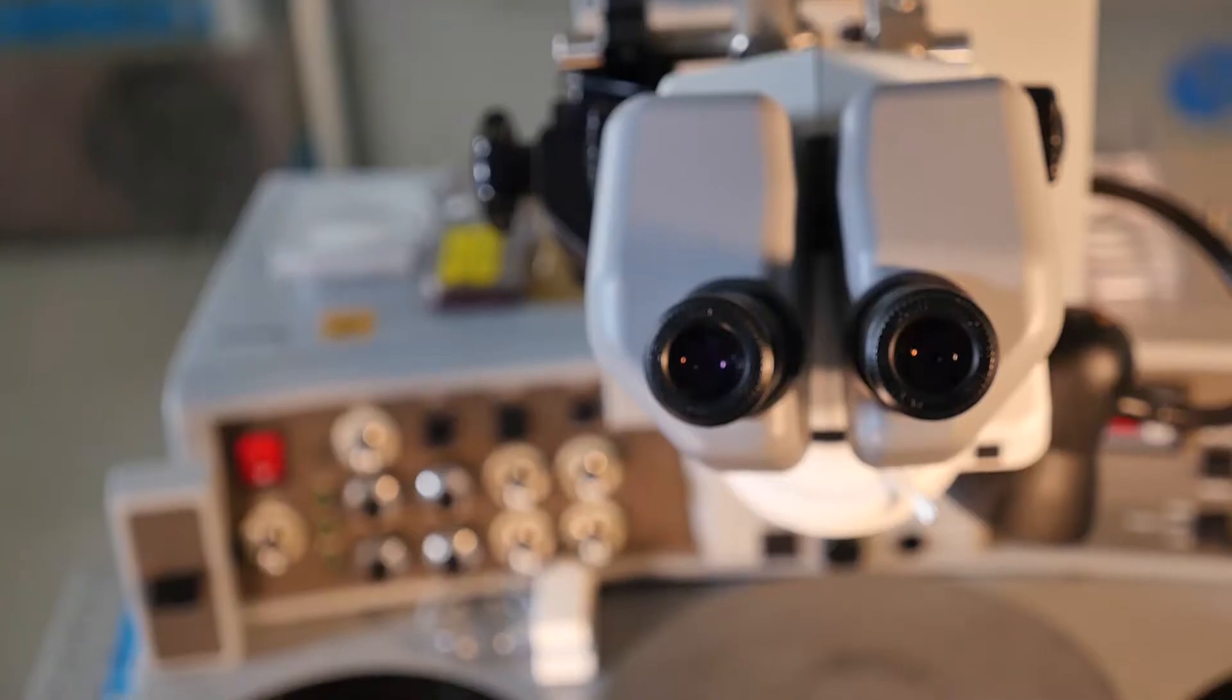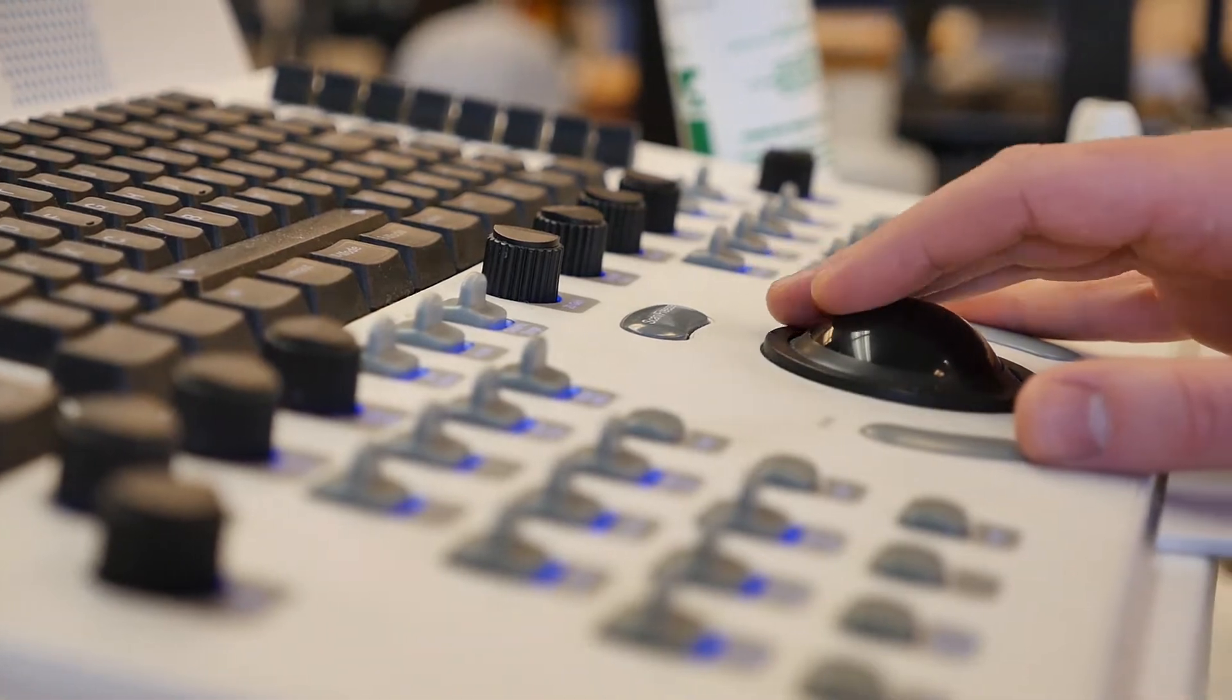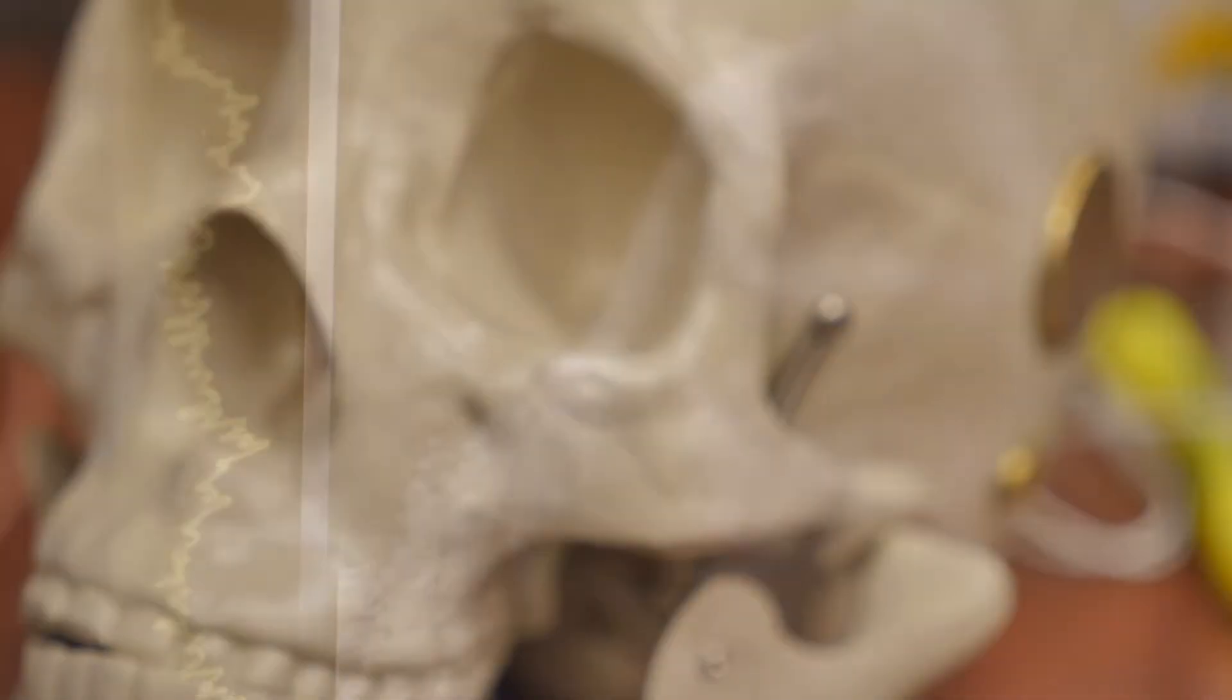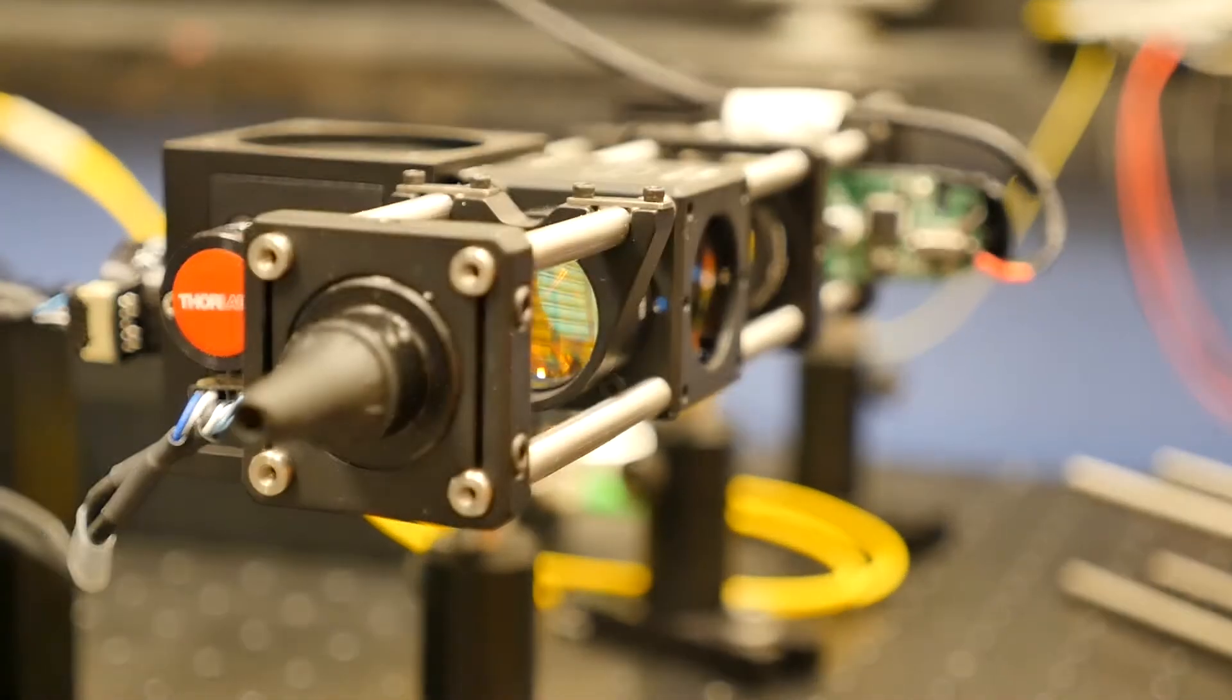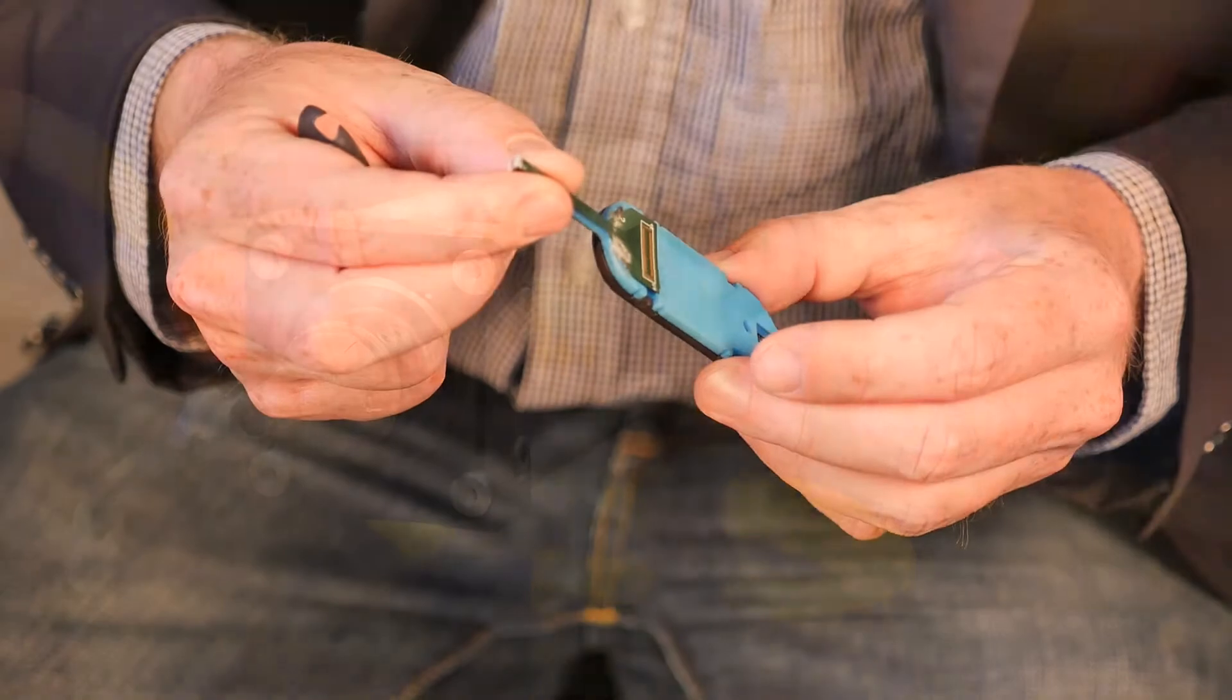We're trying to address a clinical need in developing high-resolution imaging technology specifically for the ear and auditory system. We're building miniaturized ultrasound imaging probes that have microscopic feature sizes, so they're shrunk down to the size of a pencil.